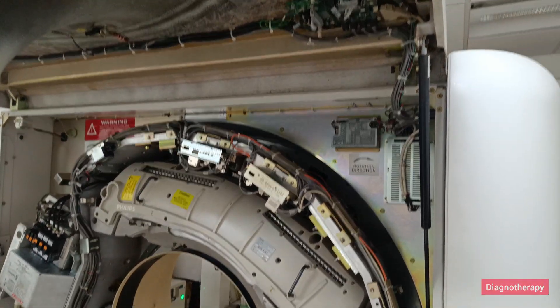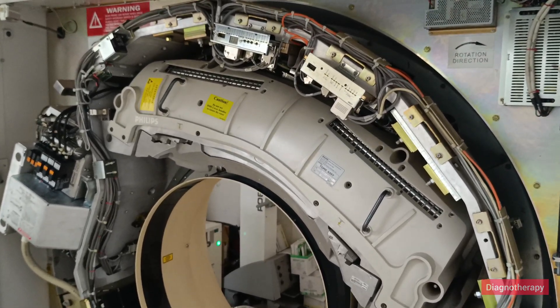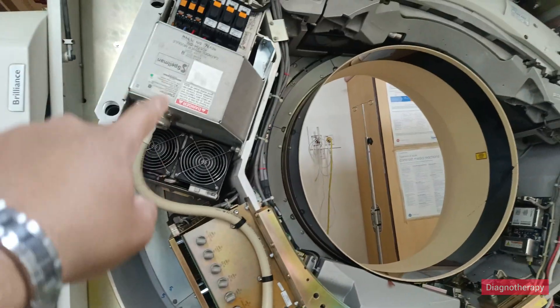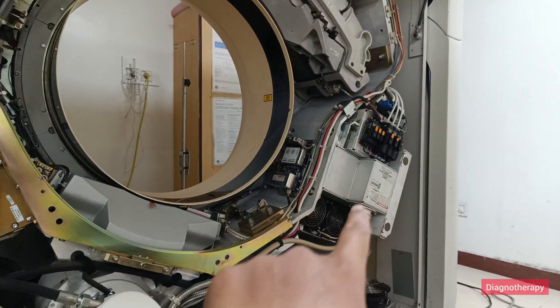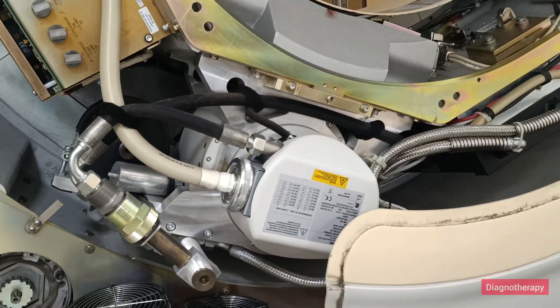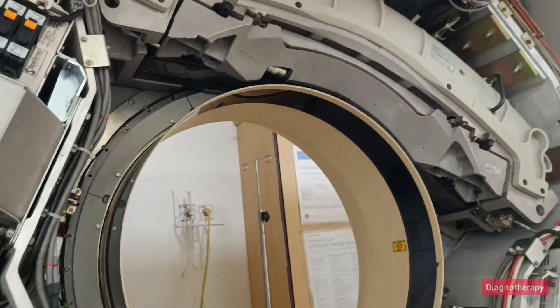You can see the hydraulics on both ends. These hydraulics have a proper torque rating so they can withstand the force. From a different angle, I am showing you the x-ray tube, the cathode tank, the anode tank, and above is the detector. You can see how compactly they are all placed.